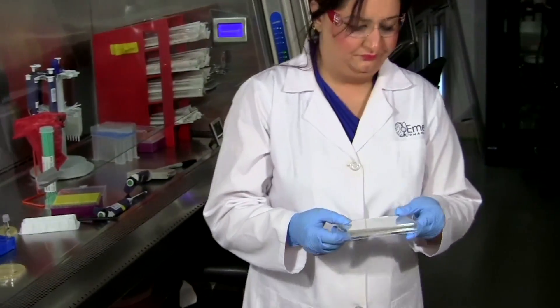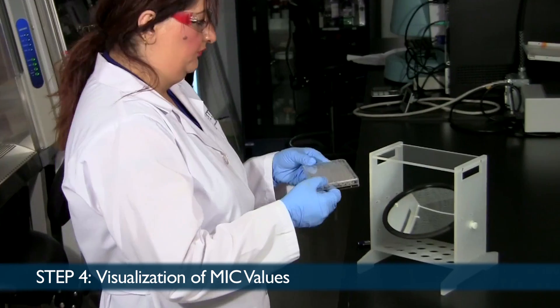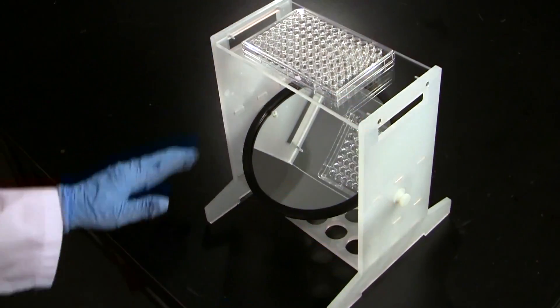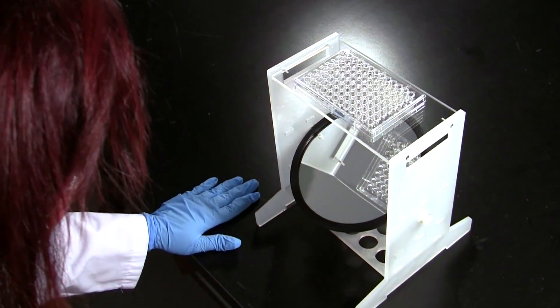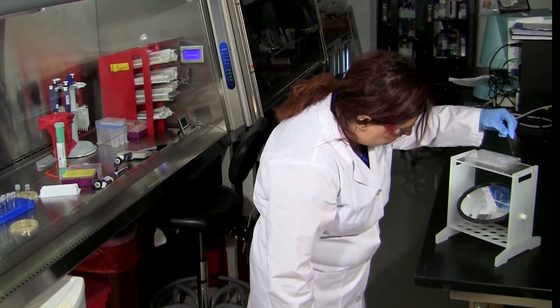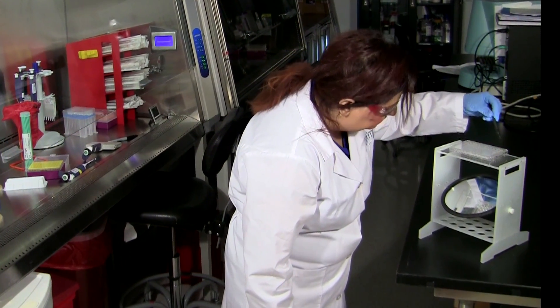Step four, which is the final step, is visualizing the MIC value. As you can see, we use a mirror reader which helps us to carefully examine each well for visible bacterial growth.